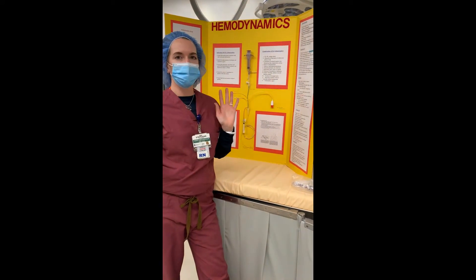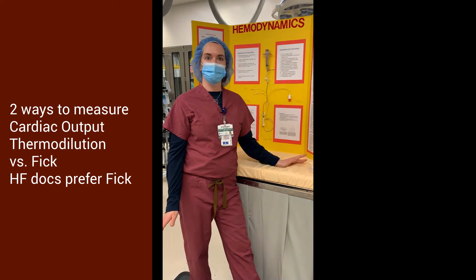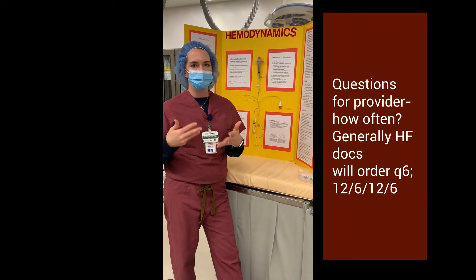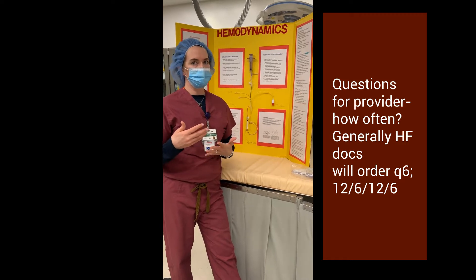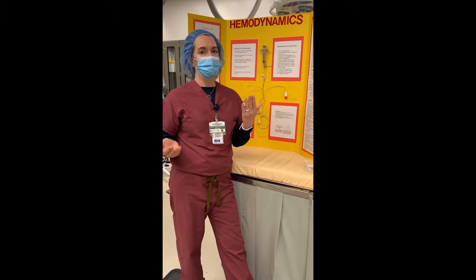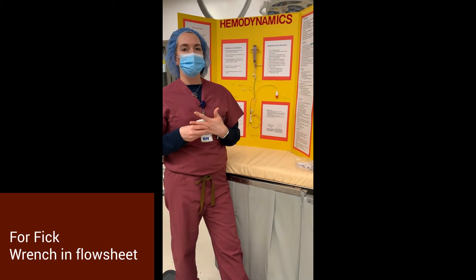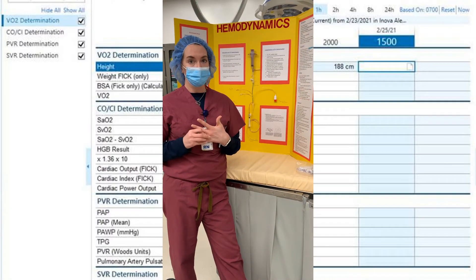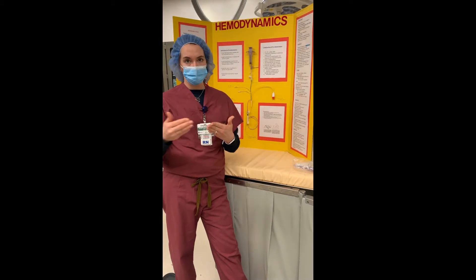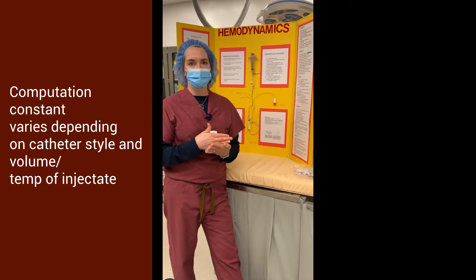So your patient has a PA catheter — what are you going to do with it? Your doctor will tell you they want to get cardiac output by Fick or thermodilution; there are two different ways to do it. They'll give you a frequency — every six hours, every eight hours, once a shift — and they'll tell you what mode they want. In Epic there's a flowsheet for Fick; you'll enter some numbers, it uses a constant, and it gives you a cardiac output based on those numbers.